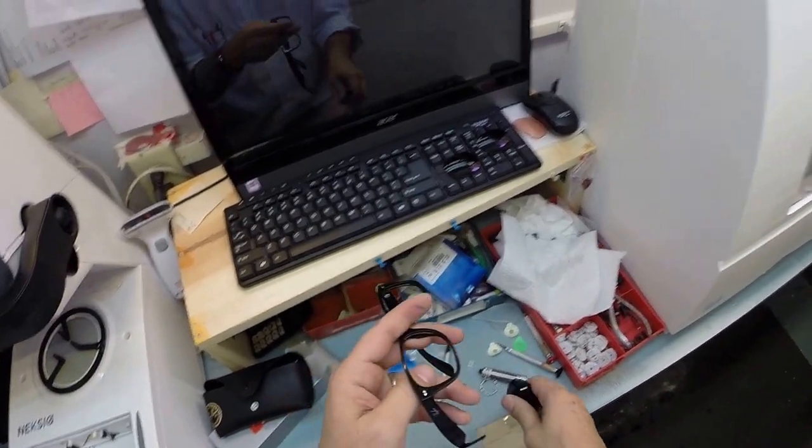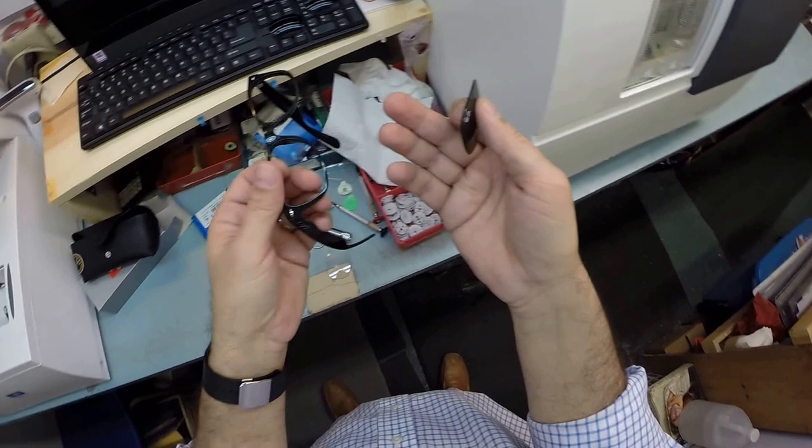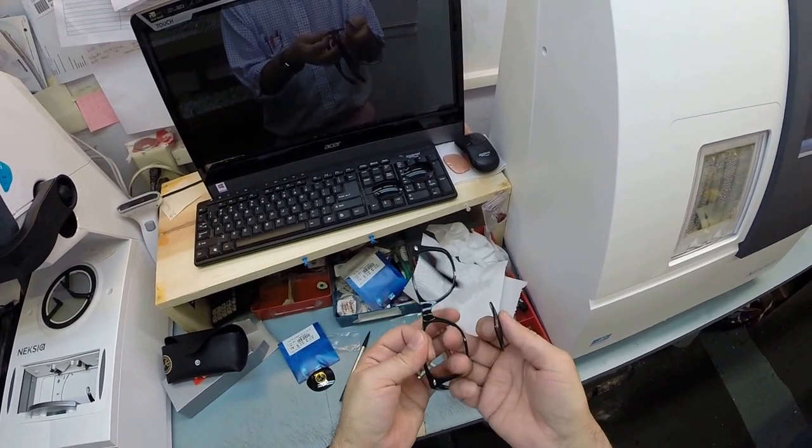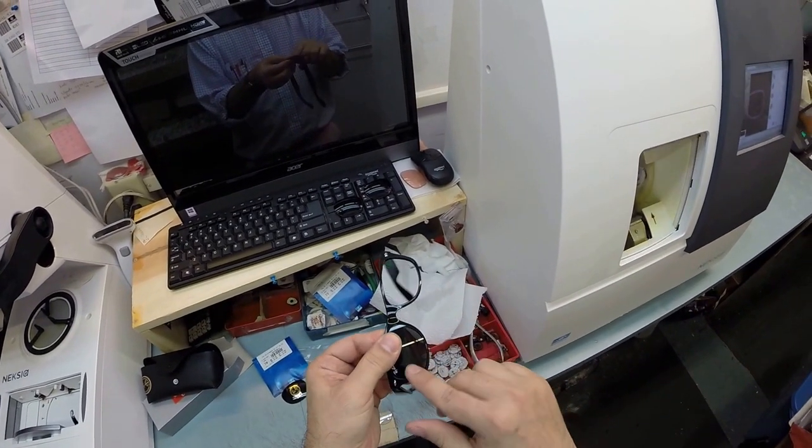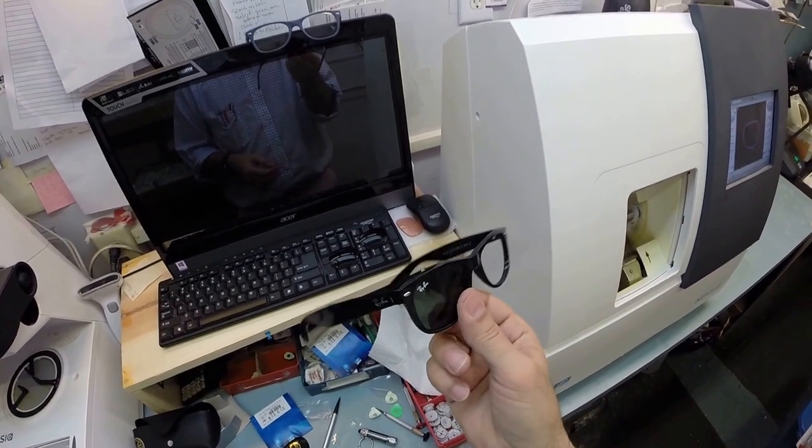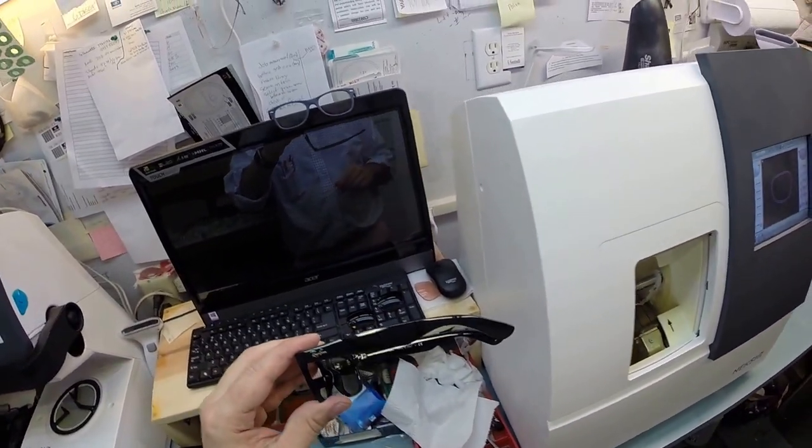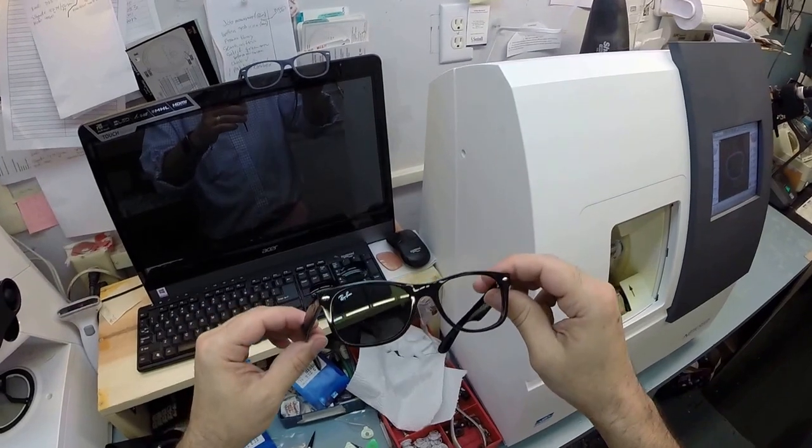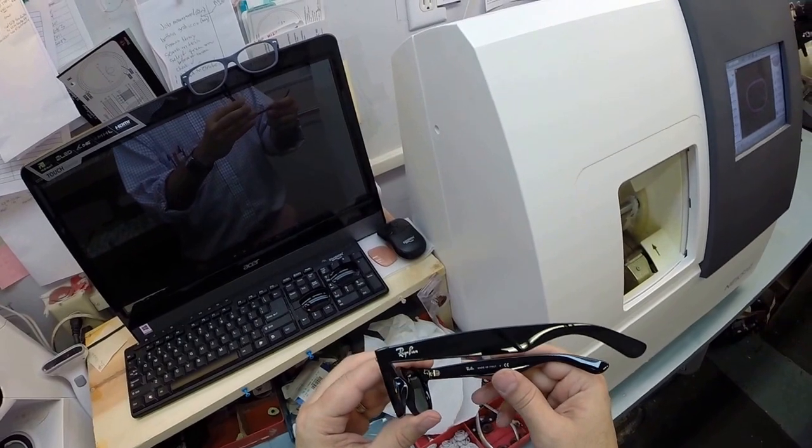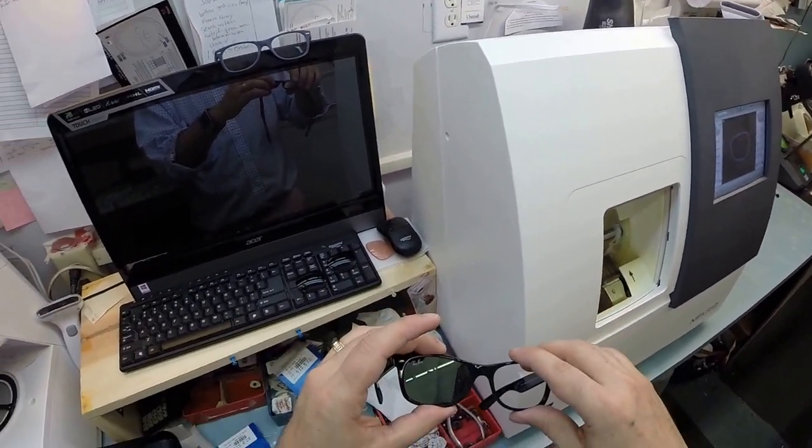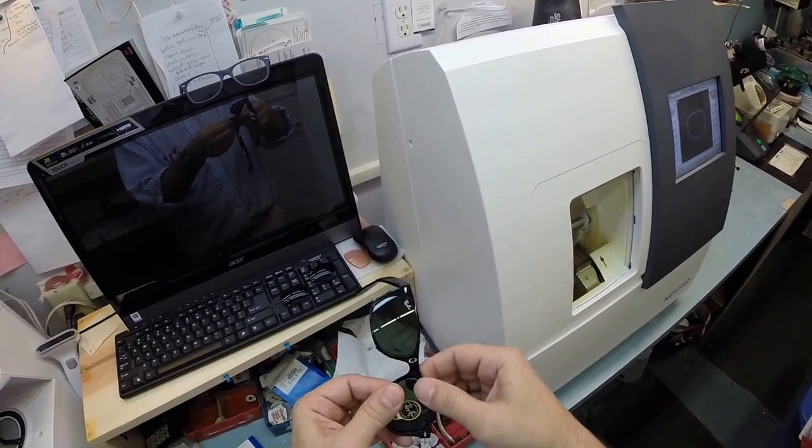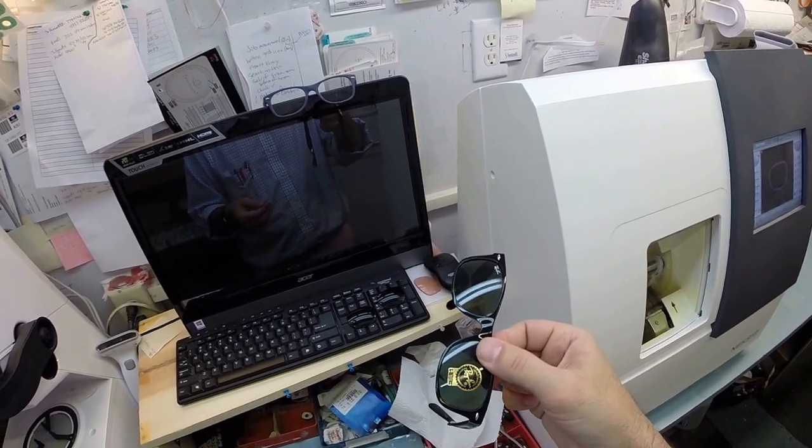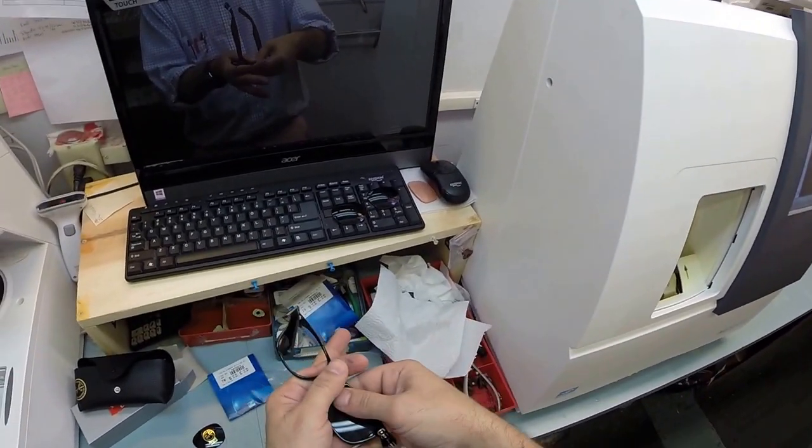To put in the original glass lenses with the logo on there, you turn the frame upright, you tuck it in at the outside corner first. I have my elbows at my sides, my arms bent at a right angle, I have the side I'm working on closest to me. I'm not trying to reach across the frame, but I tuck the lens in at the outside corner first using the thumbs. You press down and in snaps your lens. Now this works great on the 52 eye size that you got. I'm only doing this just because you are the 400th video on my YouTube channel, great milestone. Since you're a fellow North Carolinian and I love Fayetteville, I am a licensed optician here in North Carolina. Tuck it in at the outside corner, press down with my thumbs, it snaps right in perfectly.